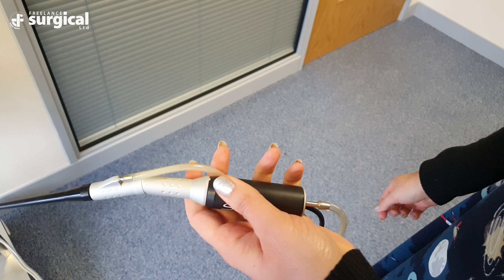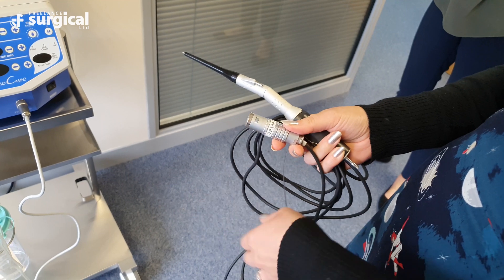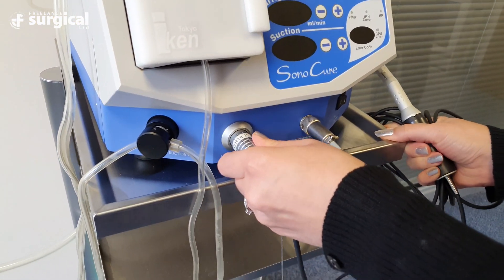Important: if using the Sonicure patient tubing multiple times, please ensure that the ends of the two lumens are kept trimmed so that these can make a positive connection onto the handpiece. A plastic pigtail should also be attached onto the fluid and the handpiece cable to prevent the tubing from kinking at this point. Attach the handpiece then to the generator and power on.